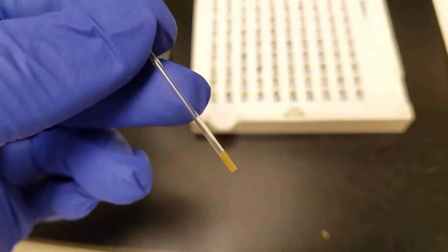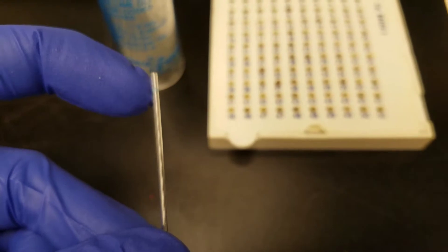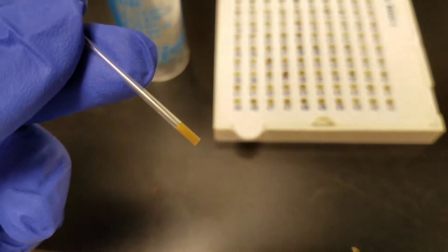That will keep the blood from coming out. And here's what one looks like. That's empty. And actually that clay should be on this end, but it's the exact same distance.